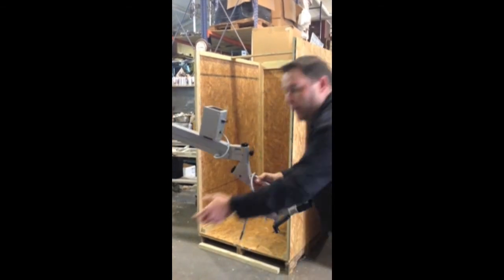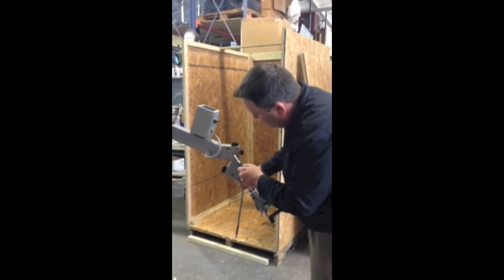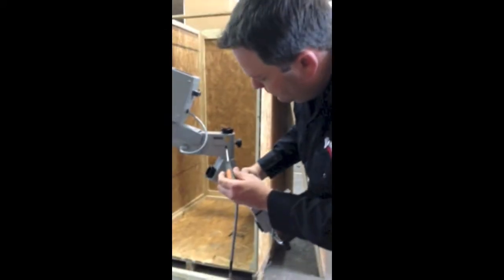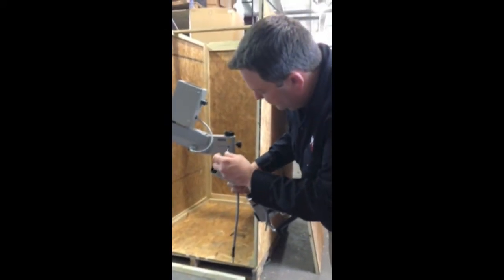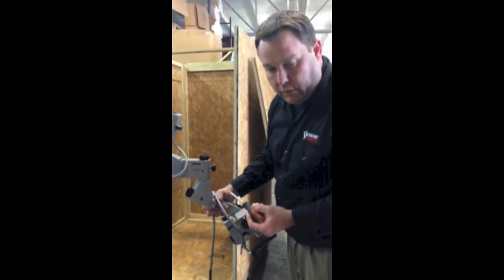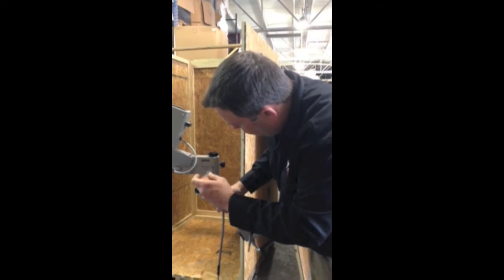Now you want to take a flat screwdriver — this is where your set screw is. You want to tighten the set screw down. This is a secondary screw to make sure that the head doesn't fall off, so you just tighten that up until it's snug.